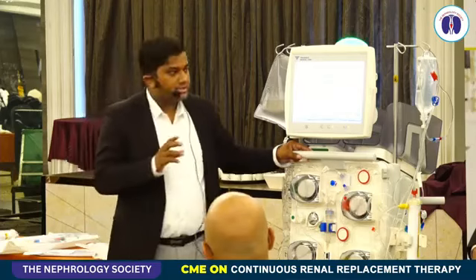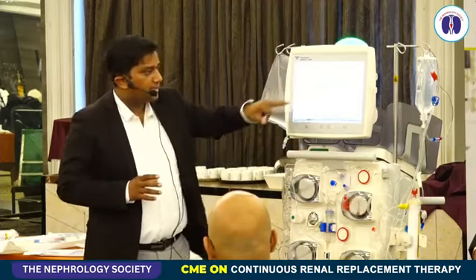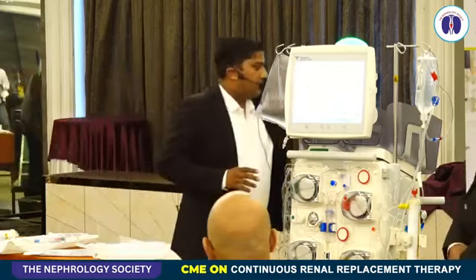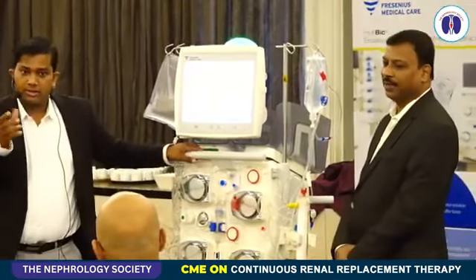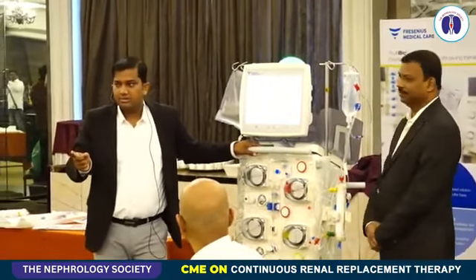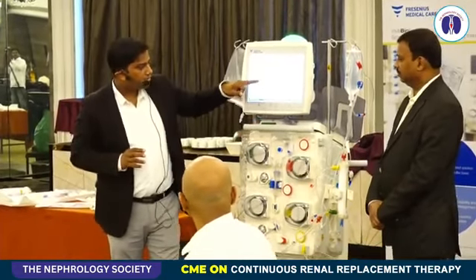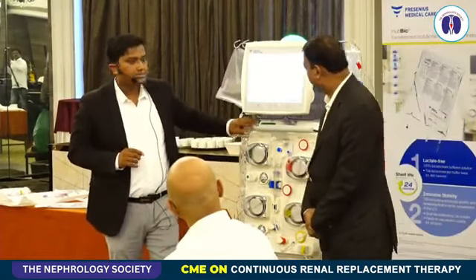See, so this software works in a way that once we go in, the bag changes, this weight you can see. And if I am removing this and putting a new bag, it starts calculating again. It calibrates the entire circuit. So this works that way. It will show you the communication between scale 1 and 2, it is being checked.